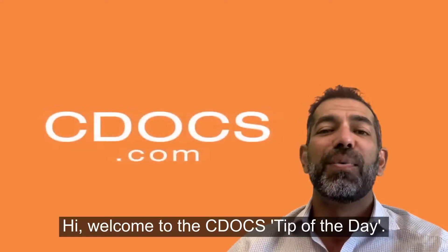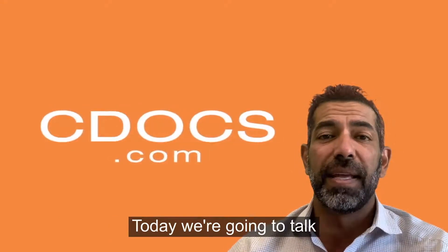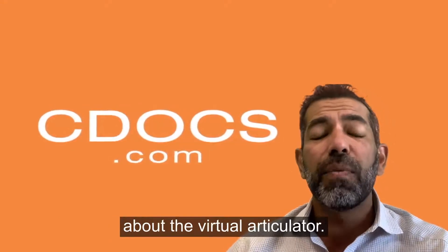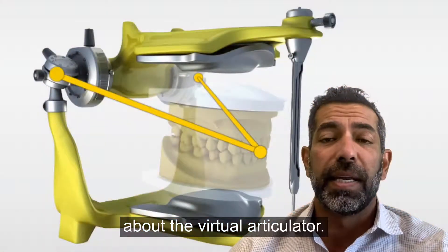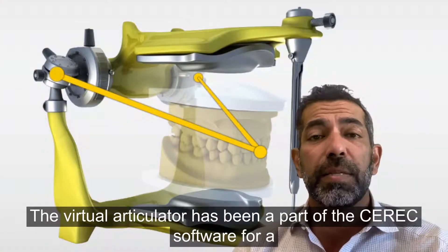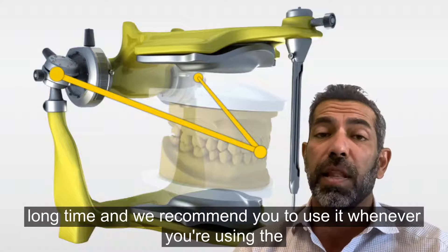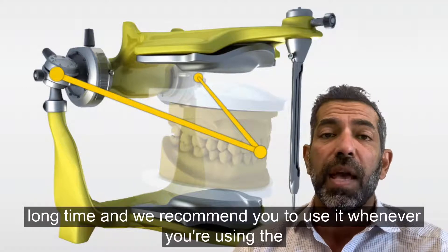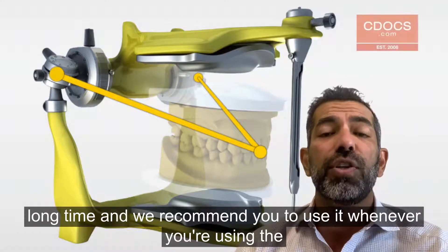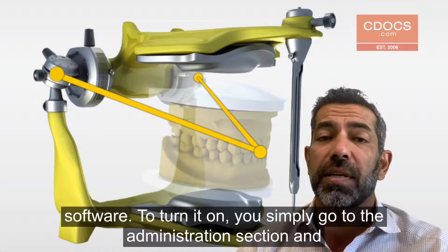Hi, welcome to the C-Docs tip of the day. Today we're going to talk about the virtual articulator. The virtual articulator has been a part of the CEREC software for a long time and we recommend you use it whenever you are using the software.